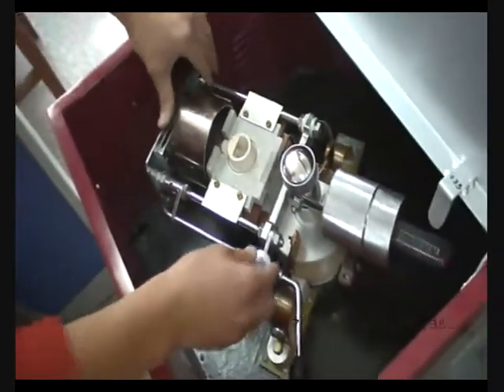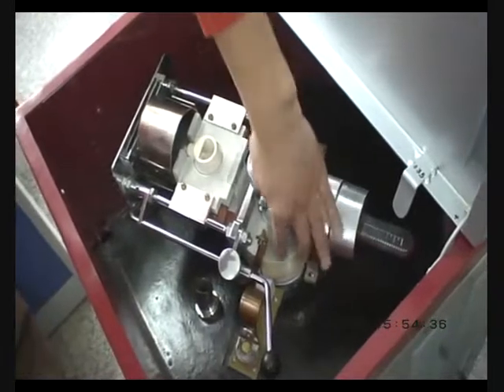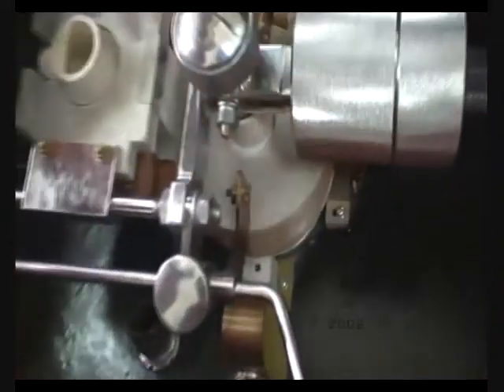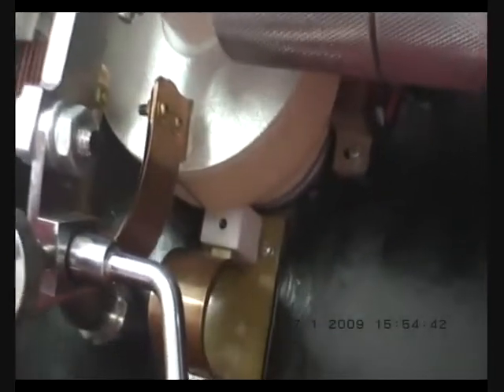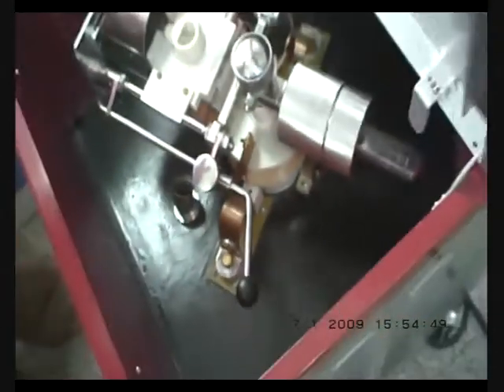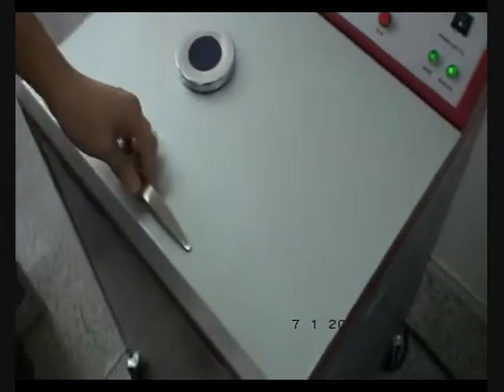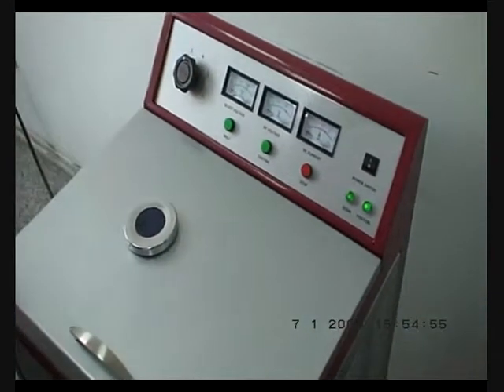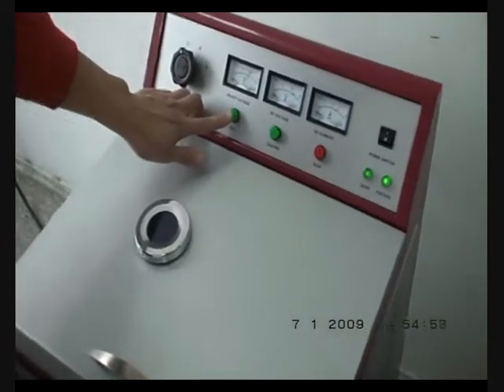After that, you can see the red line must be above the red dot. Now you can close the lid. As you can see, the door and the position lights are on. Now you can press melt.